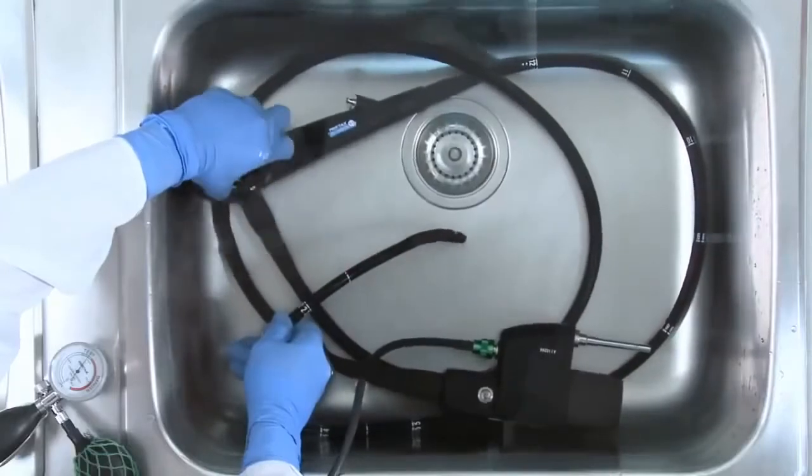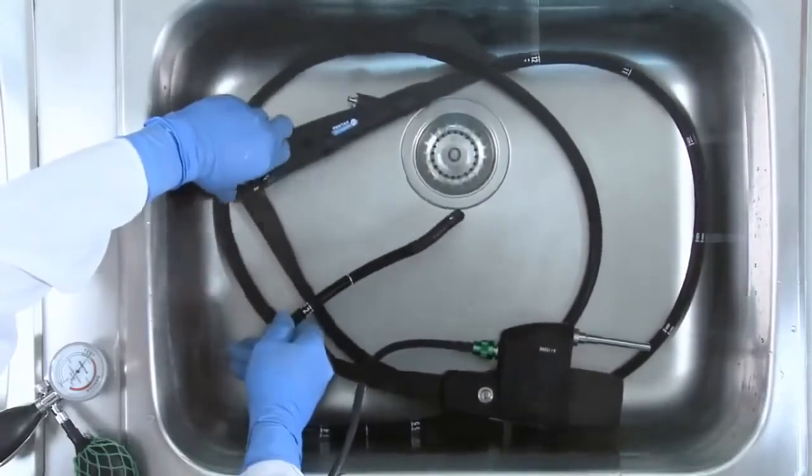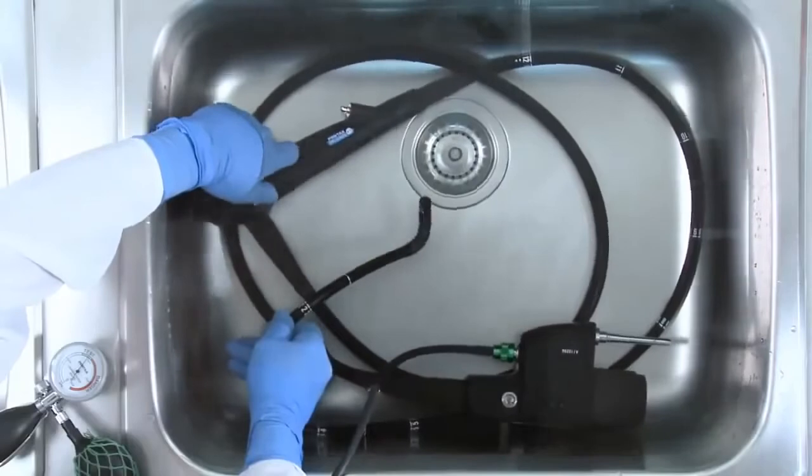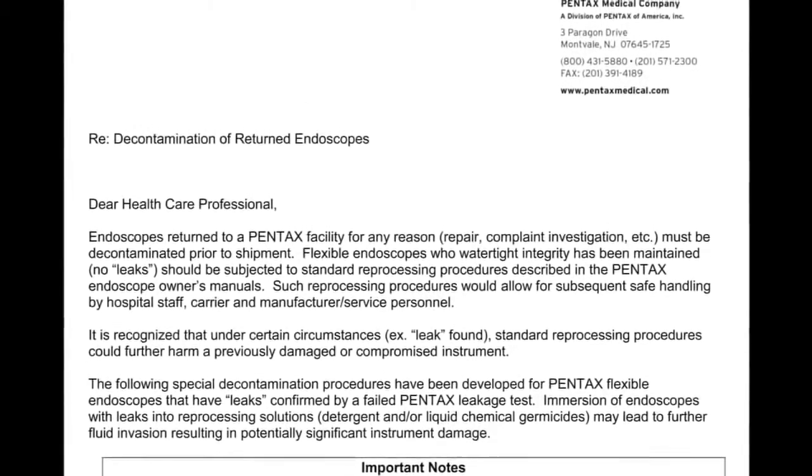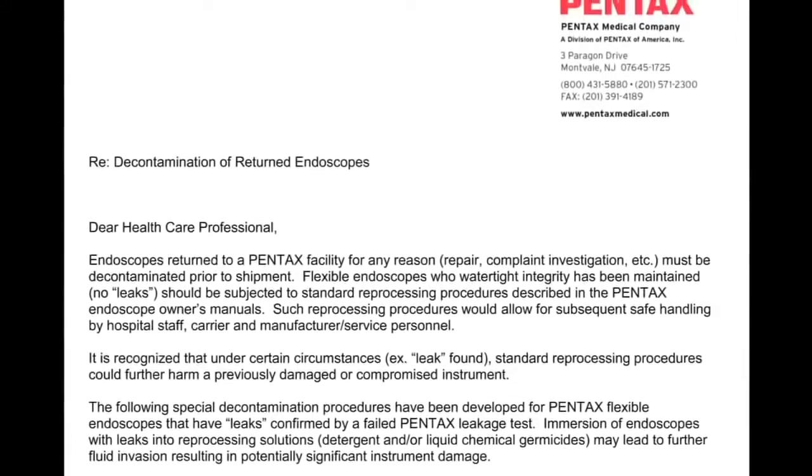If you discover bubbles that do not stop after a few seconds, remove the endoscope from the water and reprocess the instrument as per the Pentax position statement KN-111 revision D, decontamination of returned endoscopes.